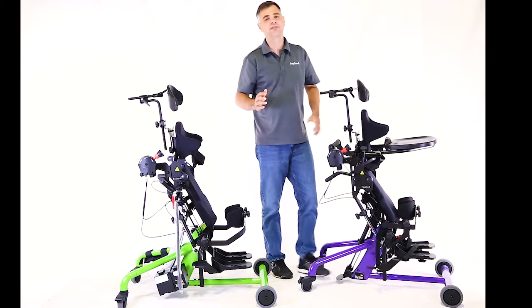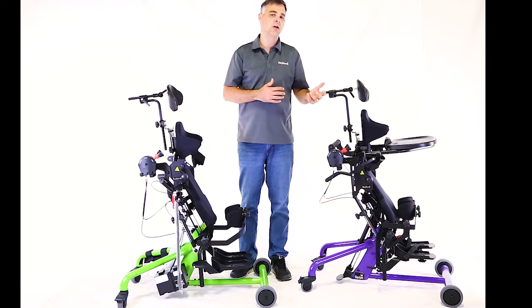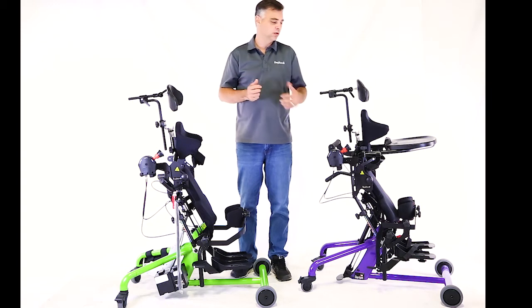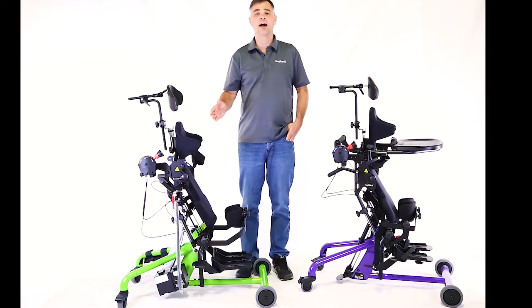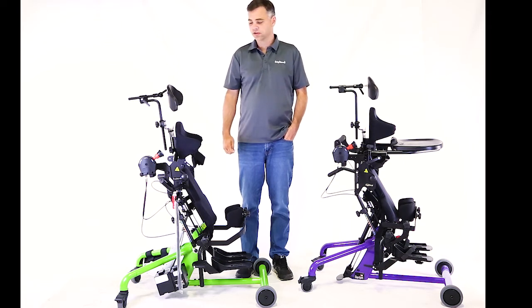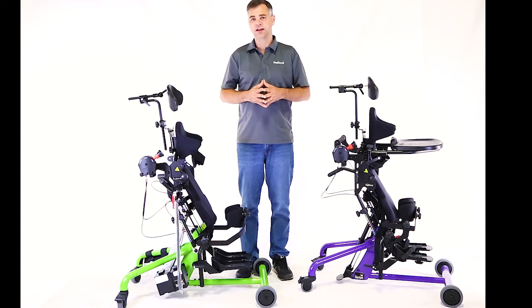What you have to be careful for when working with this: if you've been using a Bantam Small or Extra Small to prevent extending the range through a hip contracture or a knee contracture, you're going to want to make sure that you don't just rely on the unit stopping itself at a certain point if you have the power-up or hydraulic option. Make sure you manually pay attention and don't extend that knee joint or hip joint further than you need to. That's just a little update on the Easy Stand Bantam fail-safe — again, that applies to the Bantam Extra Small and Bantam Small with a power-up option or a hydraulic option.